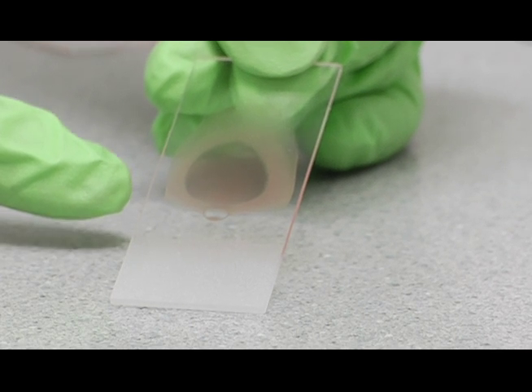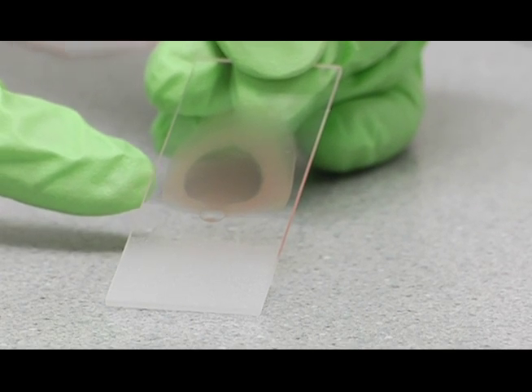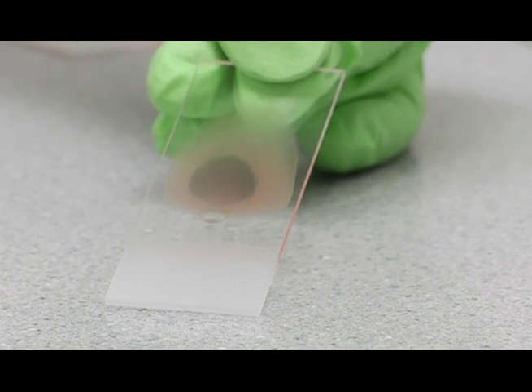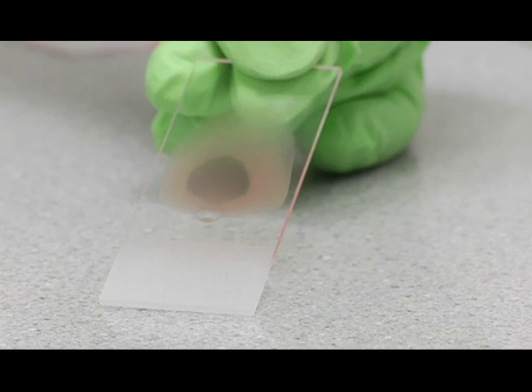This is an example of the best slide here. See the nice corona here on the end? So that concludes the demonstration and preparation of peripheral blood smears.